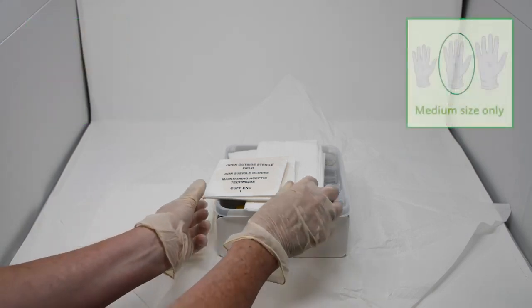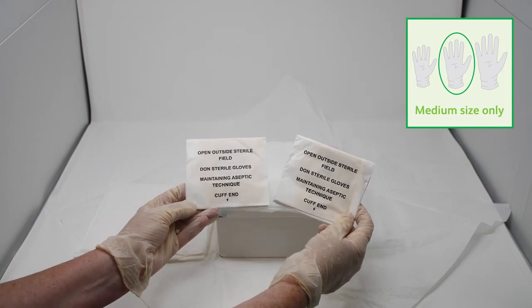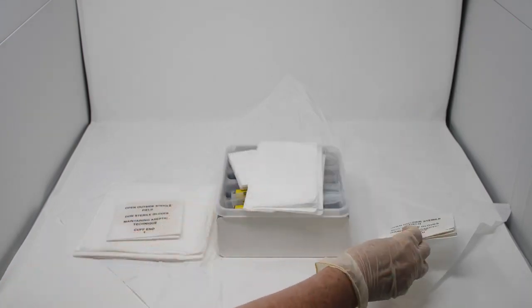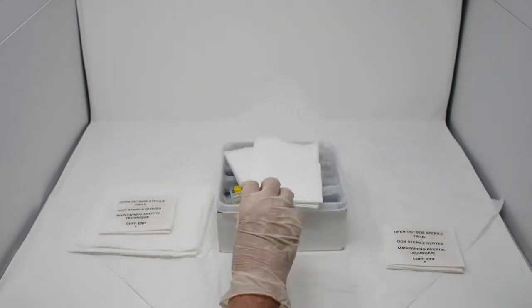There are two pairs of gloves. These are sterile, powder-free and non-latex. They are packed together in the tray. When laying out the components, separate the gloves so there is one set for preparation and one set for the actual catheterisation procedure.